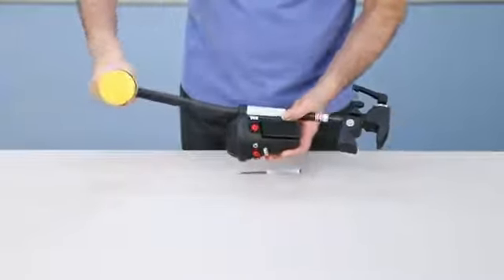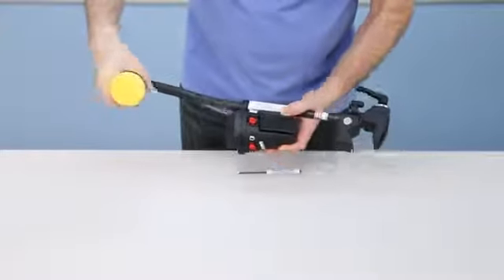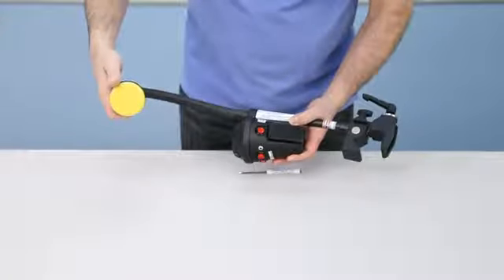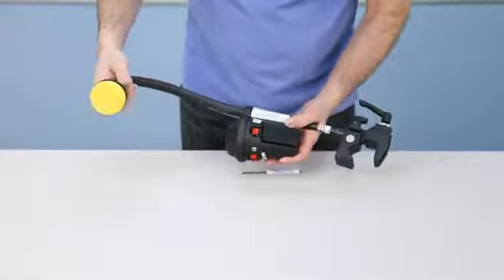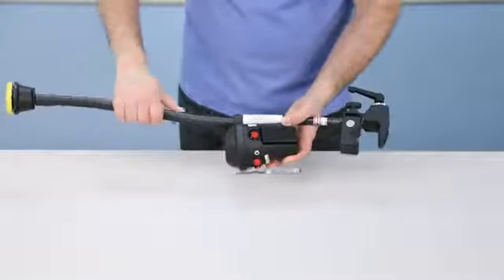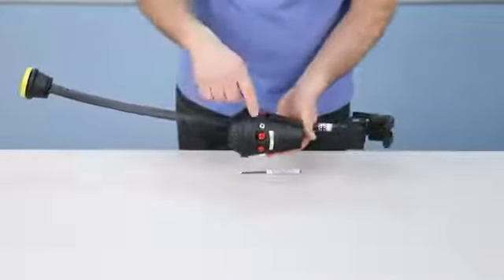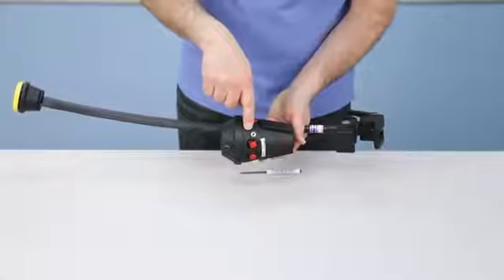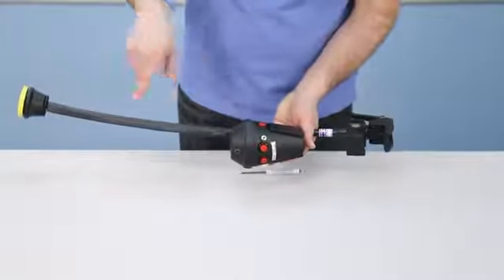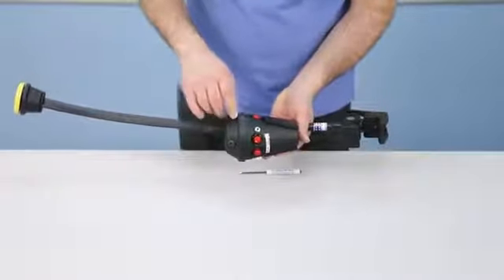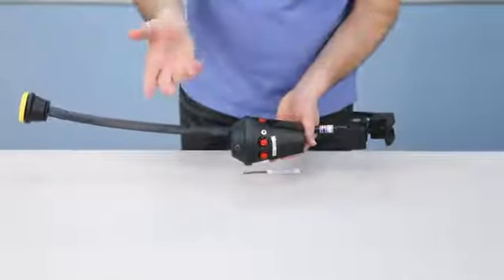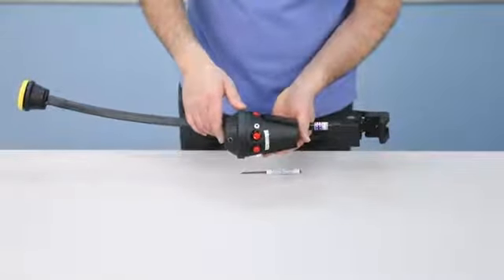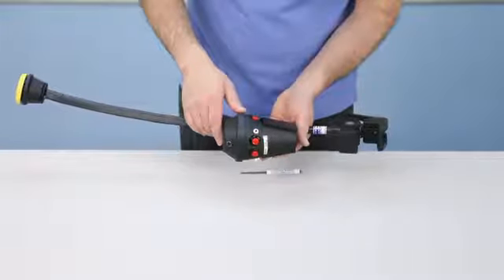It also comes with a built-in switch which is adjustable. This is one of our gumball type switches. It's a two and a half inch switch. It's very easy to activate and we also have an input jack for any other type of external switch if this particular switch is not suitable for someone. You can connect a sip and puff or some other type of switch that would be more suitable if needed.